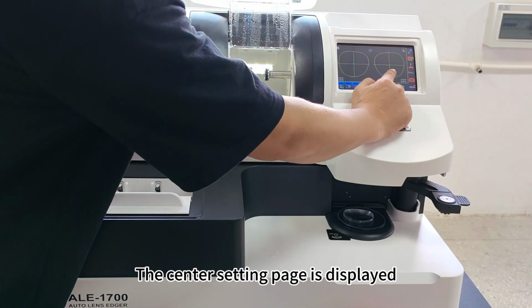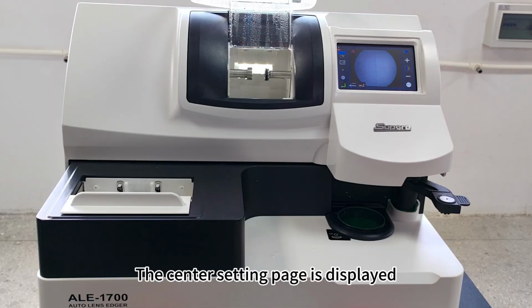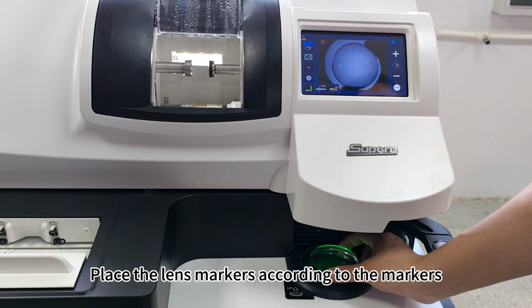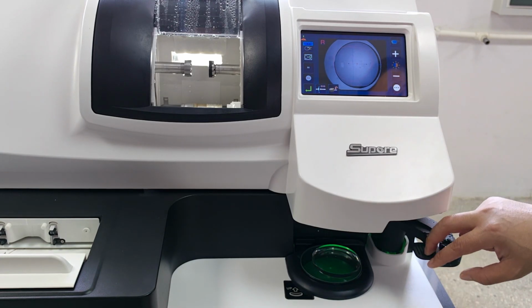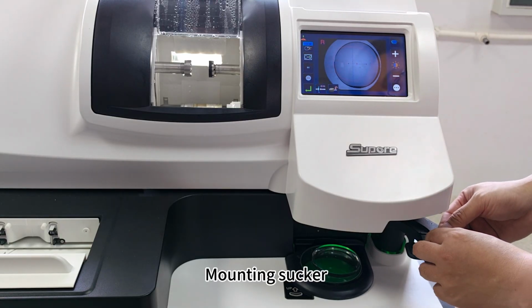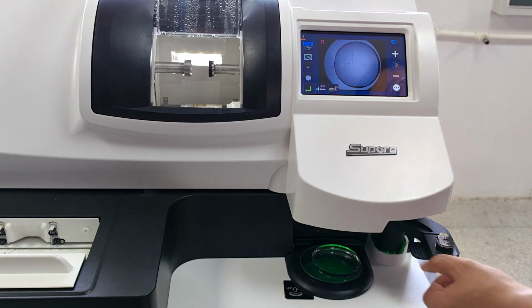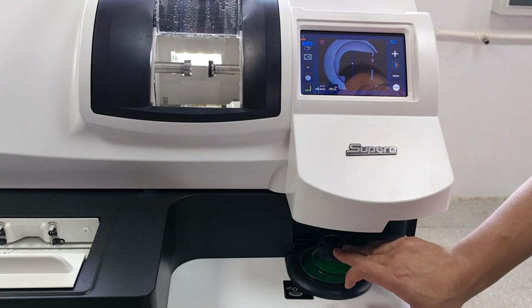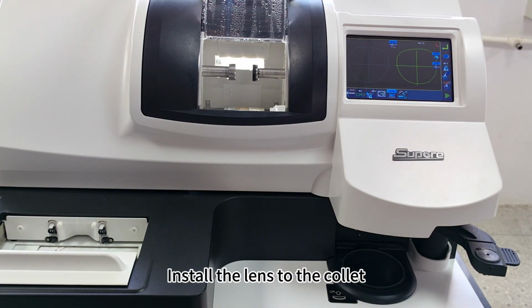The center setting page is displayed. Place the lens markers according to the markers. Mounting sucker. Install the lens to the collet.